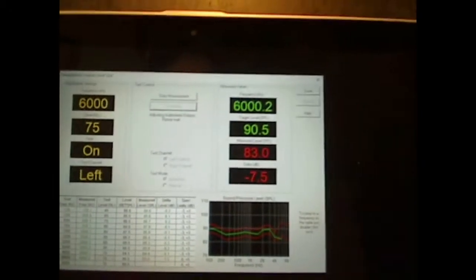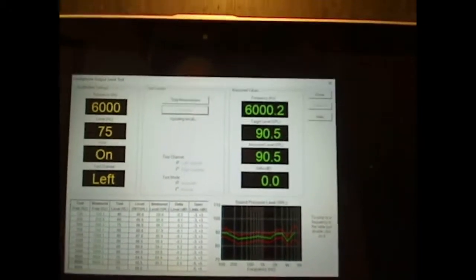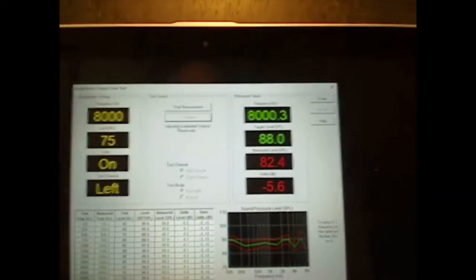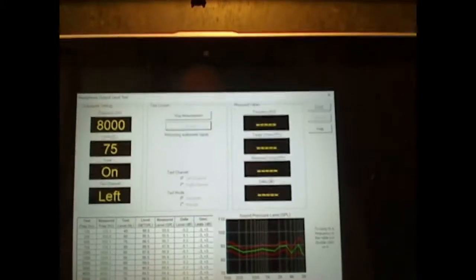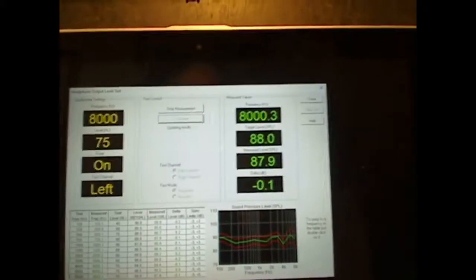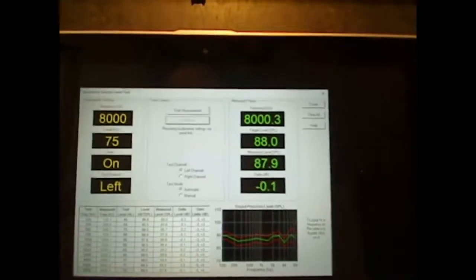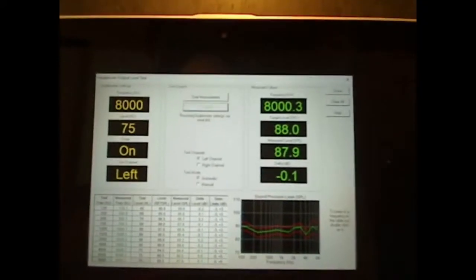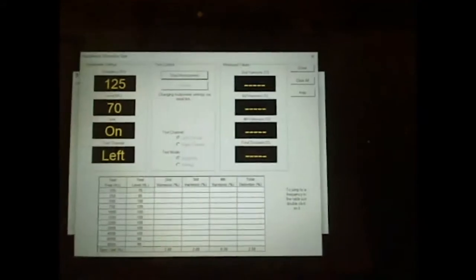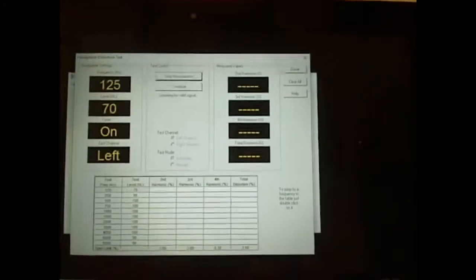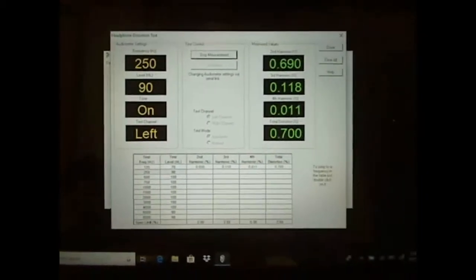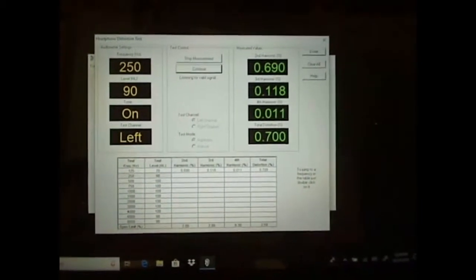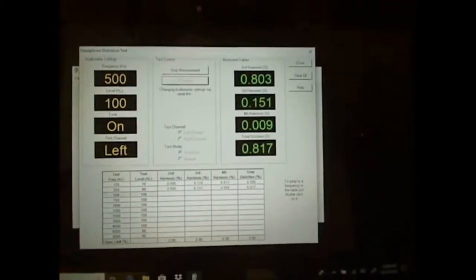Six thousand. One more. Ooh, that was really off. Well, I've grabbed different headphones on here. Who knows what I did. I just grabbed a bunch of stuff over here. It doesn't mean that the audiometer is bad. It probably just means that I have got a different set of headphones. Remember, we're not doing hearing testing around here. All we're doing is making calibrators.